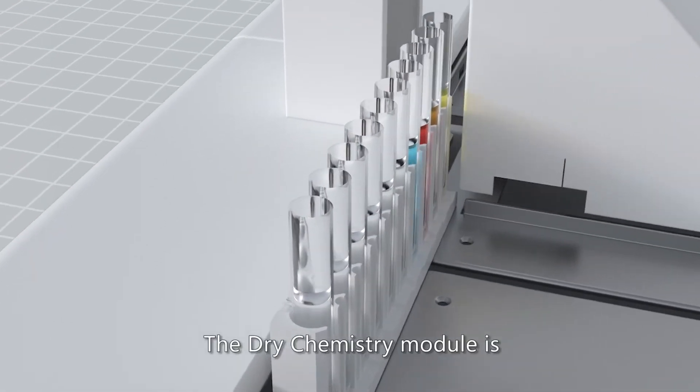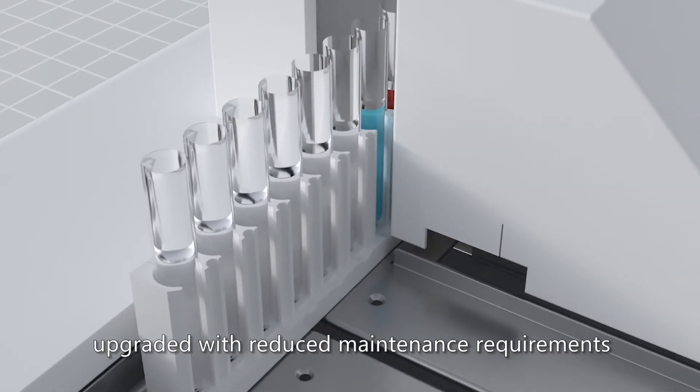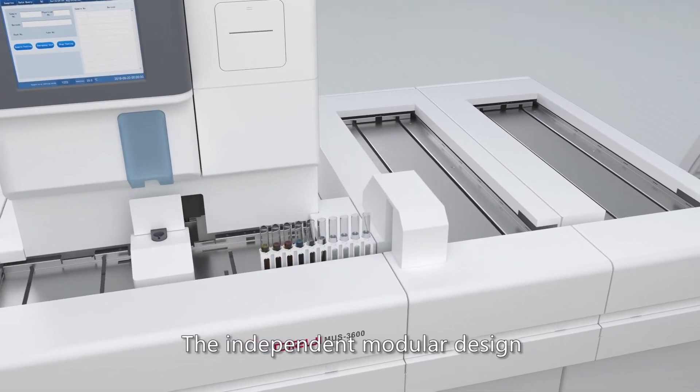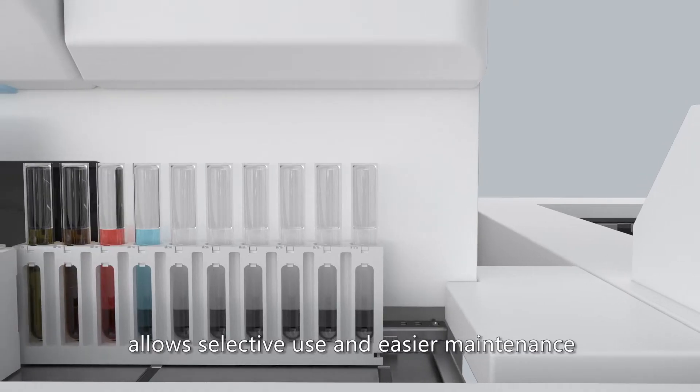The dry chemistry module is upgraded with reduced maintenance requirements. The independent modular design allows selective use and easier maintenance.